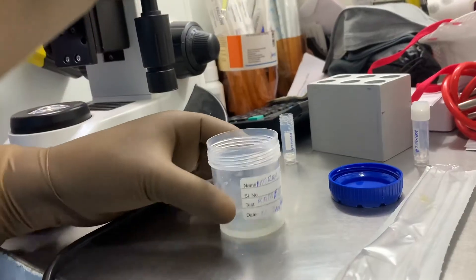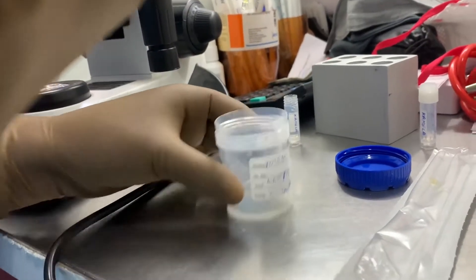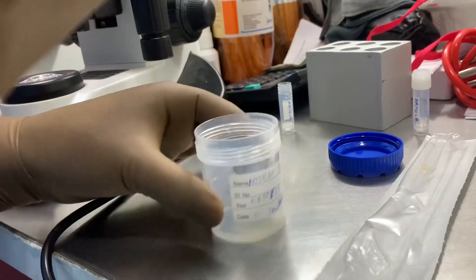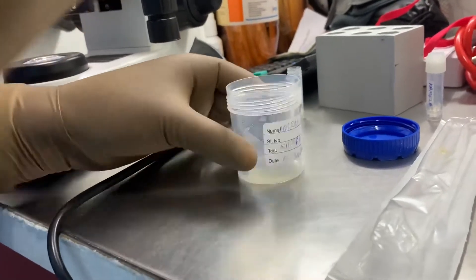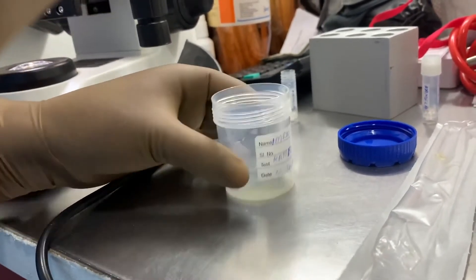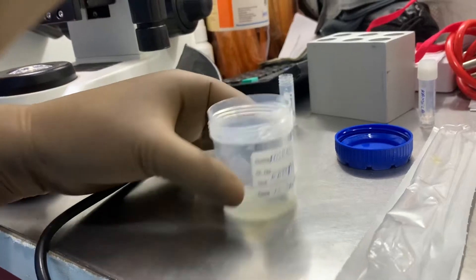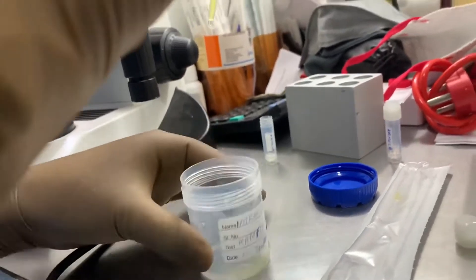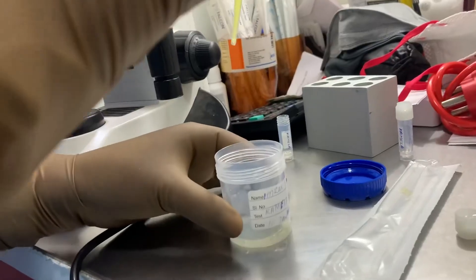So now what I am doing is this cryoprotectant media needs to be mixed with the semen. Very slowly, drop by drop. Because drop by drop you need to add.